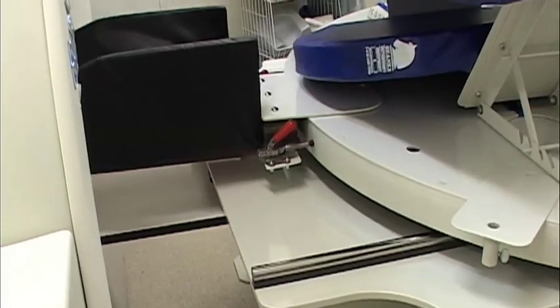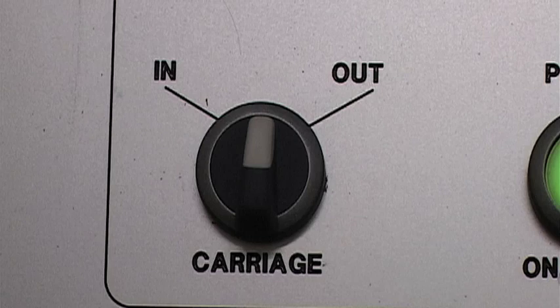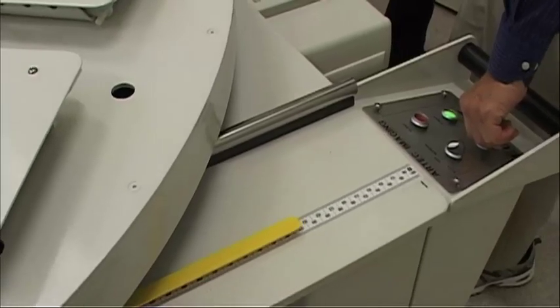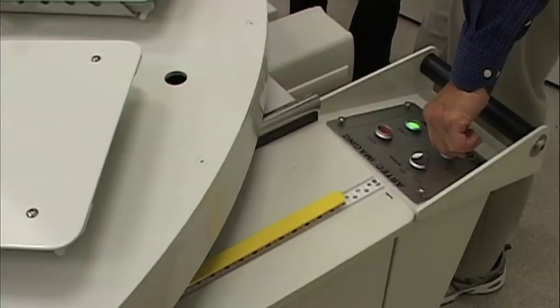Linear movement of the carousel is also easy to achieve. Travel is controlled by a simple switch on the control panel. The carousel glides along two stainless steel, heavy-duty guide rods in a smooth, stable manner. An easy-to-read distance scale is provided for precise positioning if required.